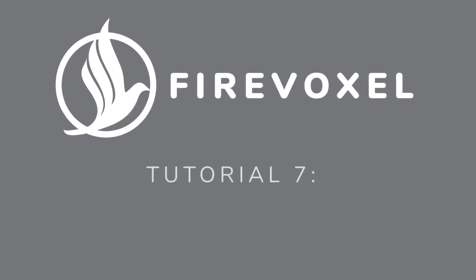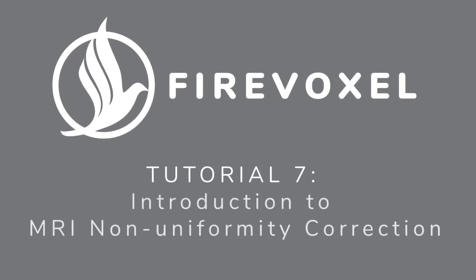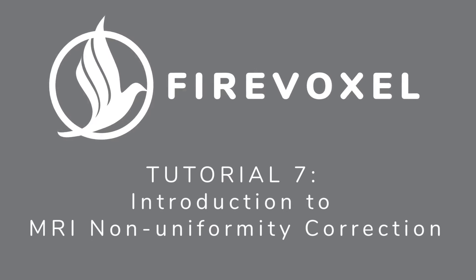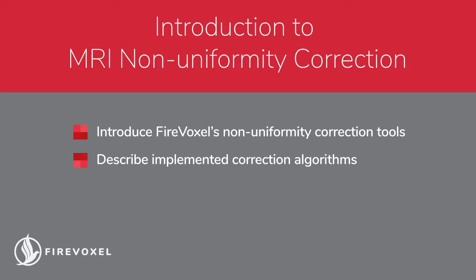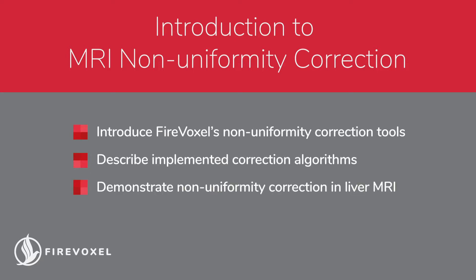Hello and welcome to the FireVoxel tutorials. In this tutorial, we will introduce FireVoxel's tools for MRI non-uniformity correction. We will provide a brief overview of the correction methods implemented in FireVoxel and demonstrate how to use them to reduce non-uniformity in liver MRI.